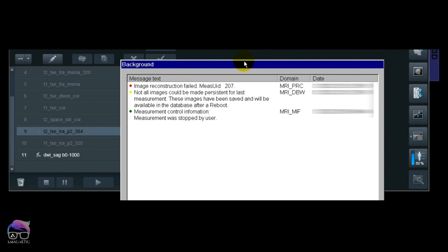So do you want to do a reboot? No. Do you want to do a rescan? No, because it takes time. Let's try another method first.